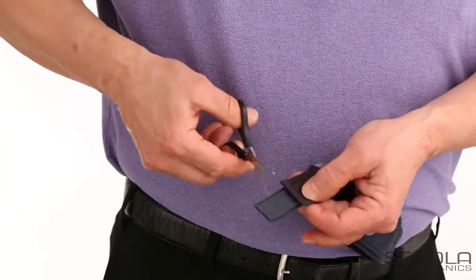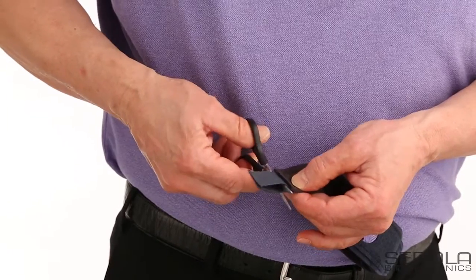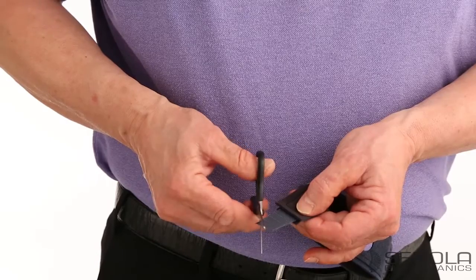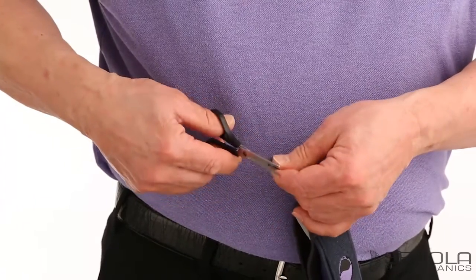then the bottom layer, and finally cut the corners to round out the end of the hook tab.